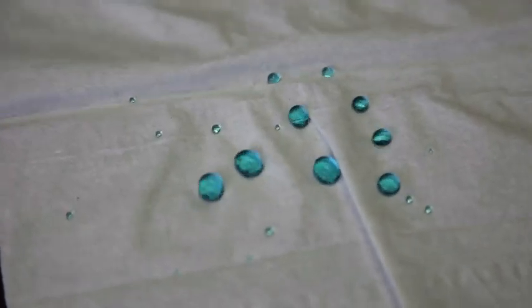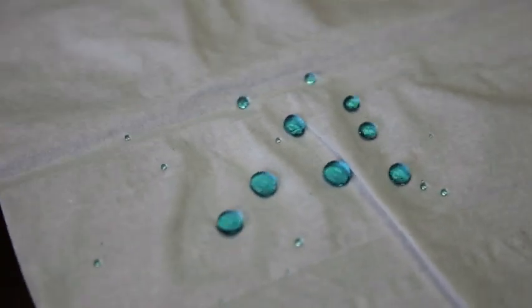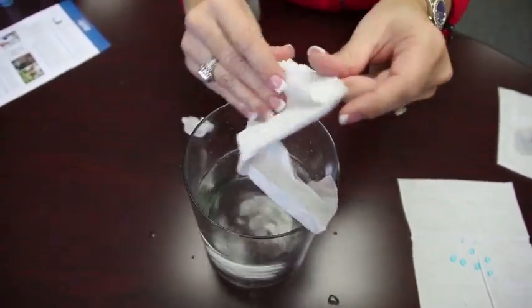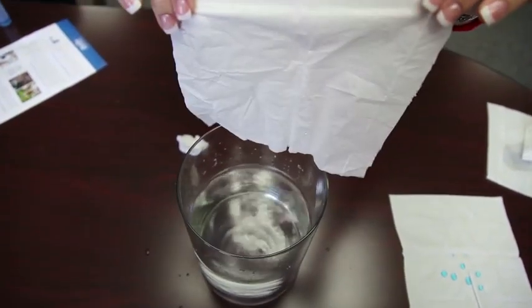Instead this actually bonds inside and out to protect these hearing aids, these HD hearing aids, from moisture and sweat. And it's really something that is going to help the hearing instruments last longer.